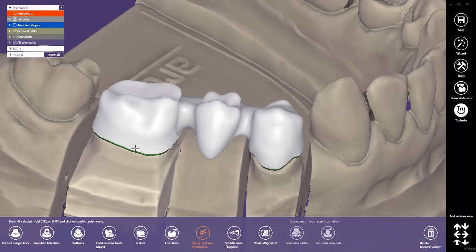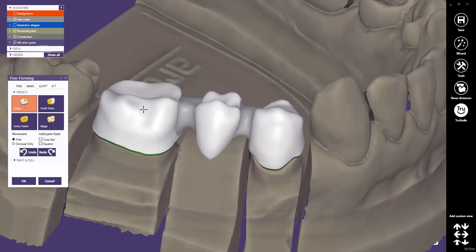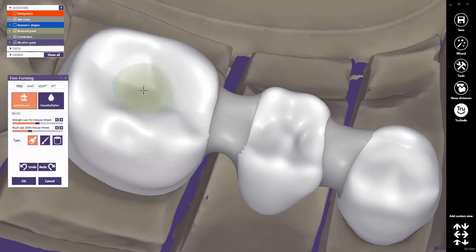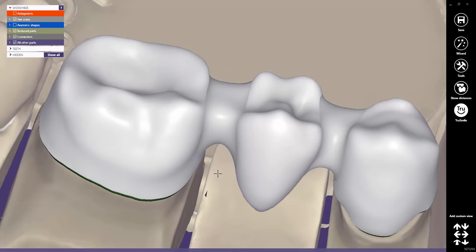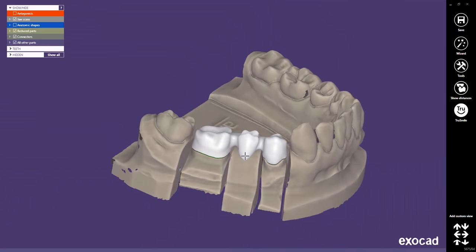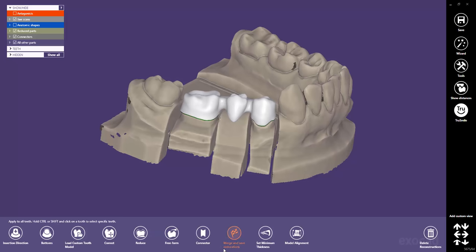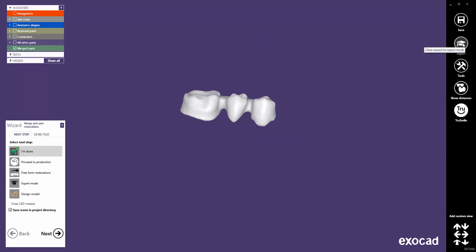You might stay in Expert Mode to, for example, freeform or remove material and to create a thinner crown in the occlusal area. Finish and export the new restoration by clicking on Merge and Save Restorations in the Expert Mode window, or simply by restarting the wizard. The restorations will be re-exported automatically.